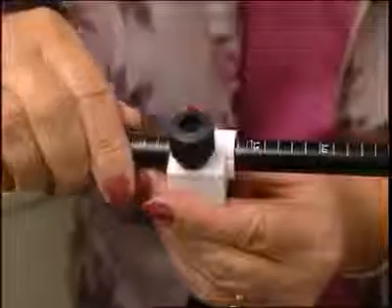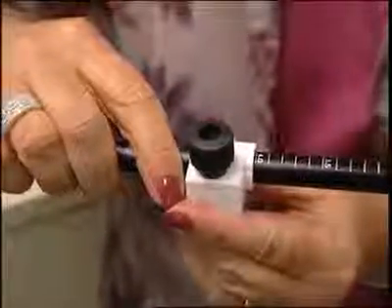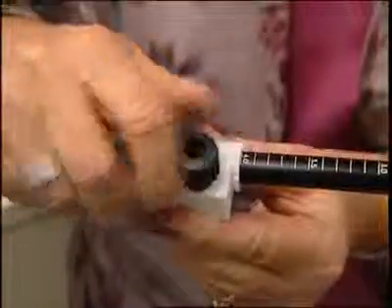Increase the volume syringe to 4 liters by moving the locking collar on the plunger bar of the volume syringe to the 4 liter mark. Perform the next 5 tests at this setting, remembering to allow adequate time for the gas analysis and computation at the end of each in the series.